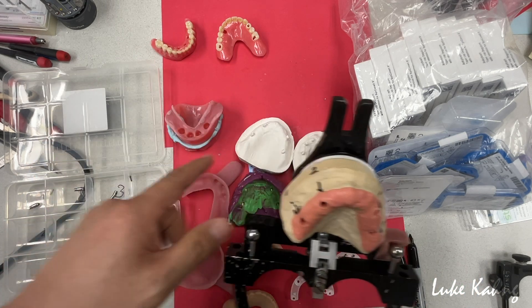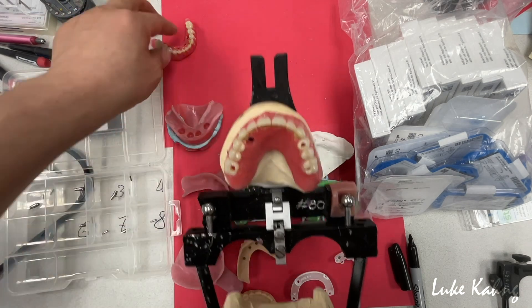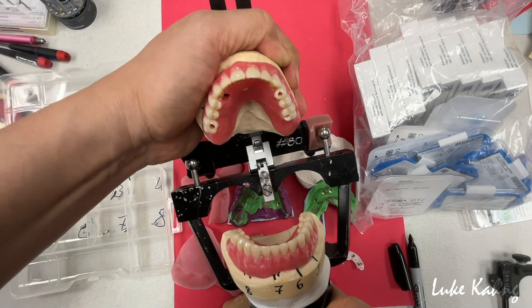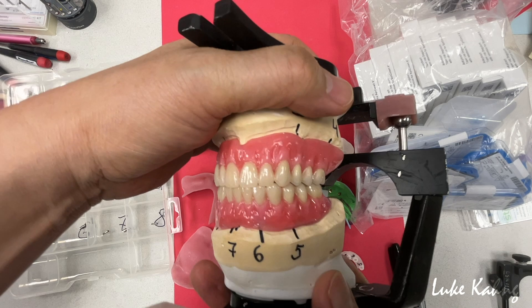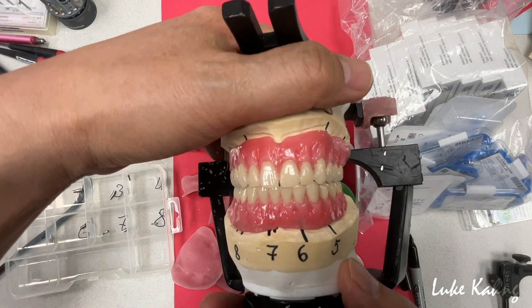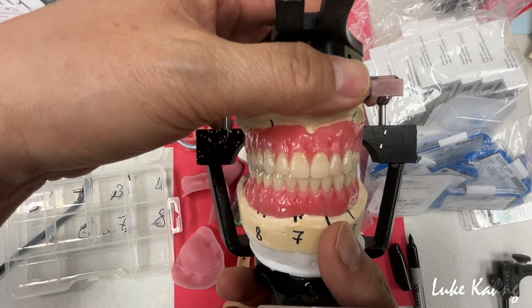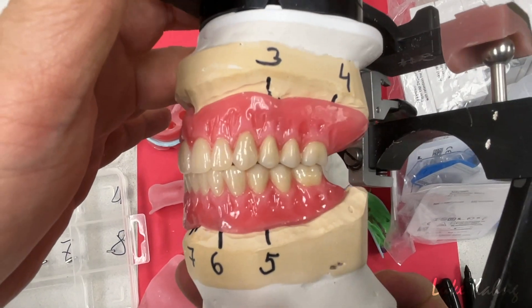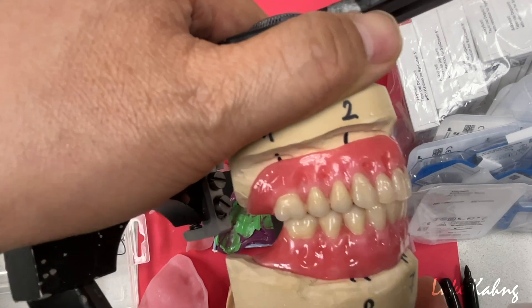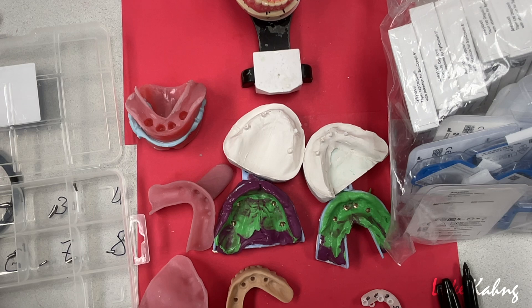Now we fabricated from what doctor said — to not follow this, so we made this great wax try-in. So we made them whole — the top and the lower — and then it's finished. So our job made this great wax try-in in between the maxillary and mandible. Just like that. So now, if patient's happy, it's not much changing. Usually we got the reset wax out from after bite, and probably the bite was slightly off, midline possibly off, aesthetics are off too, so we require the photo from them. Anyway, our stage three is done. So now we send it all back to the doctors so the doctor can utilize all this good information which he provided. Thank you very much. I call this part one — I'm trying to update in part two as well.